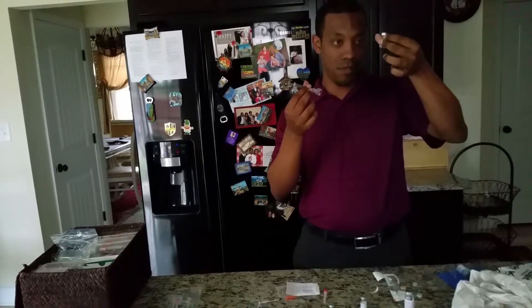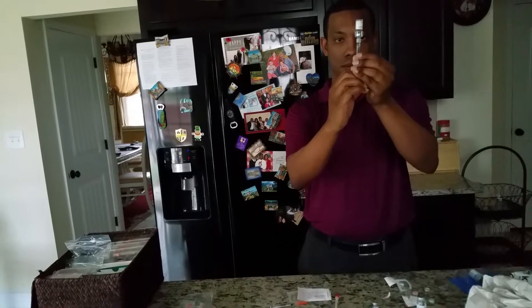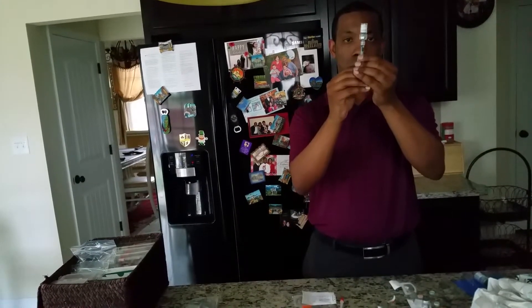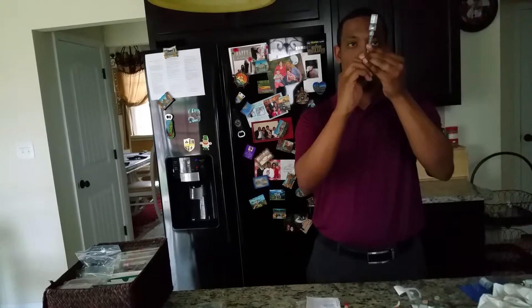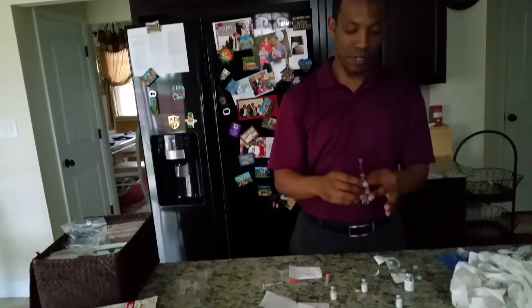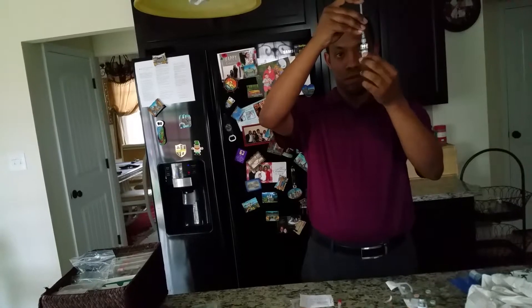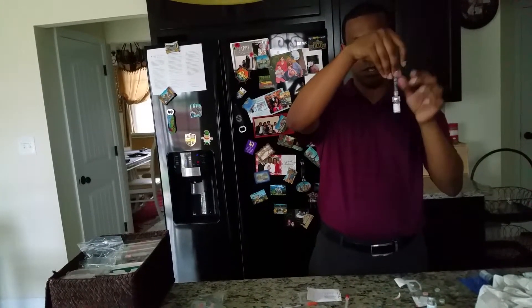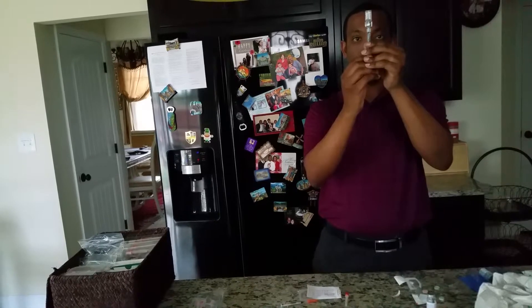I took the Q-cap off just so I can see whether or not it's done. I'm going to switch it back in there and then take it back out. Got it. All right, there's no residue on that one. We'll take this same saline and stick it into the next one, and drop it in there to help that dissolve. Swish, swish, swish. Not up and down. Turn it upside down and take it back out — the more we do this, the more concentrated this saline mixture gets.